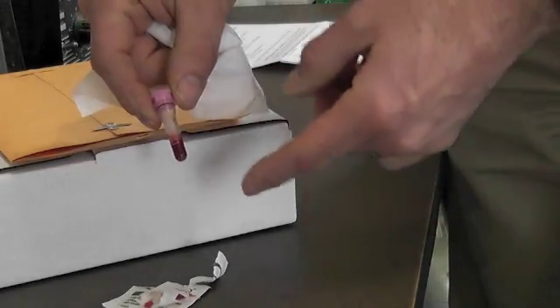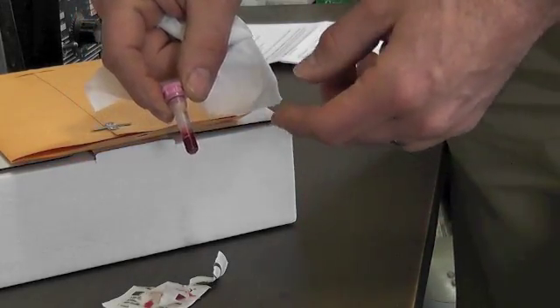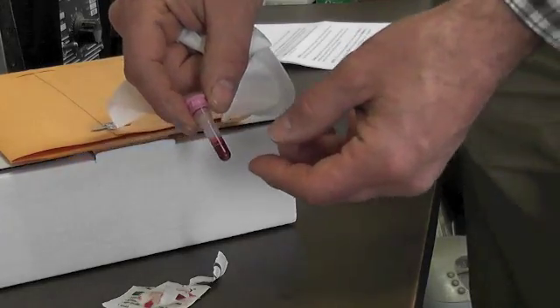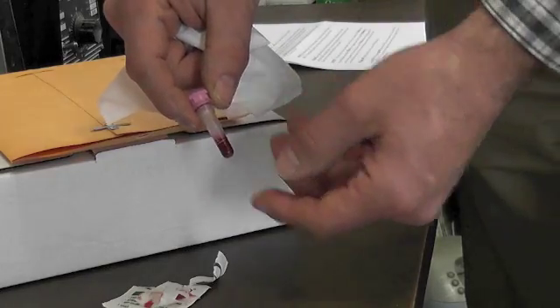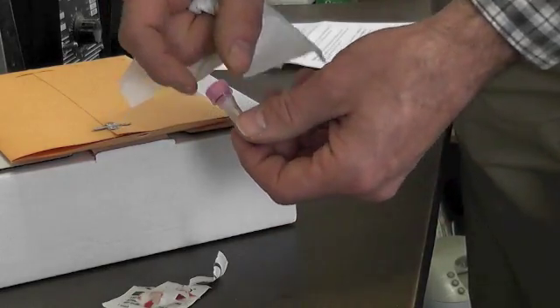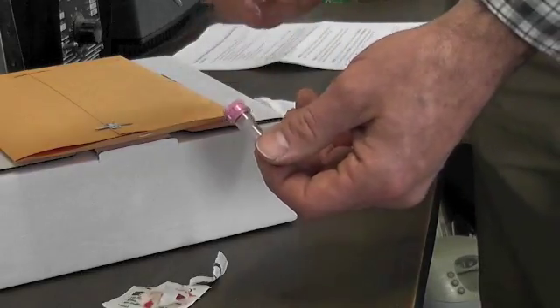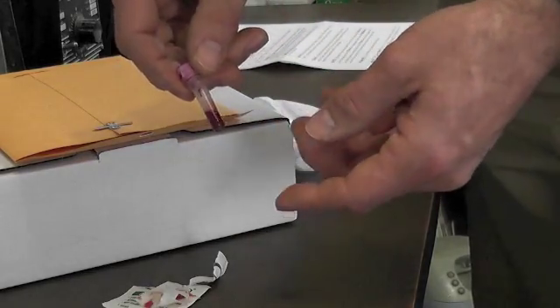Now you can put that into your protective tube, put that into the plastic bag with the absorbent in it, put that into your mailer. Put all your paperwork in there and send it back. Make sure you sign everything you need to sign. Get your paperwork done, you get your lab results back.